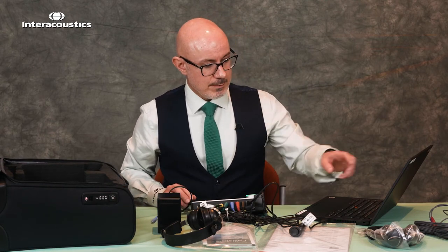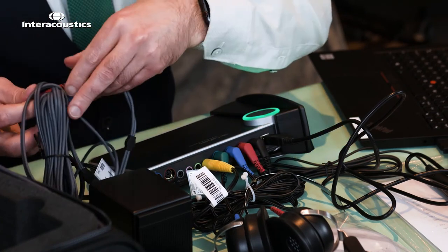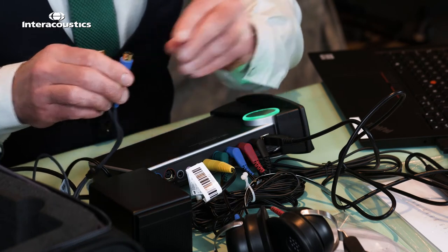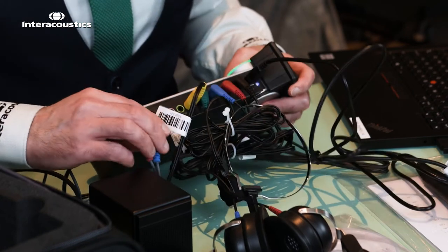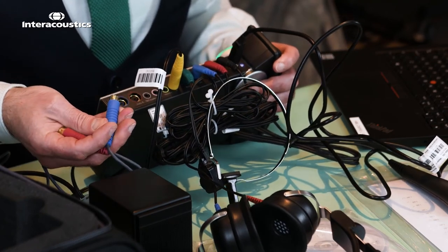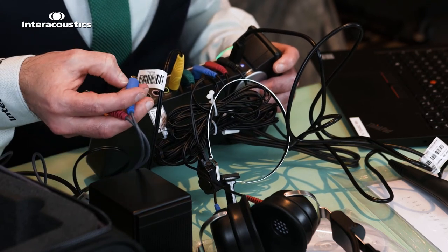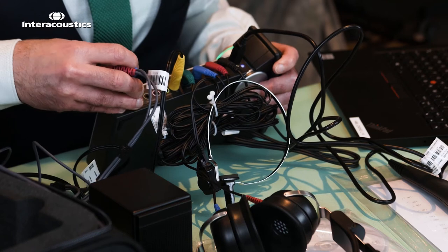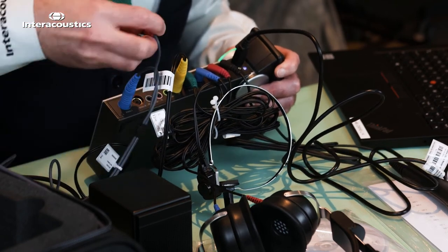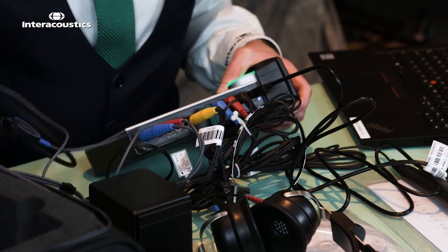Moving to the REM headset, we can see that these are colour coordinated. Be careful with the pins — you'll see some indentations and some markings. It takes just a few moments to line those up before putting them in situ. Look at the pin orientation to minimise any damage. There's also a little arrow at the very top of each connector to align with the little arrow on the actual port itself. Once in situ they are ready for use.